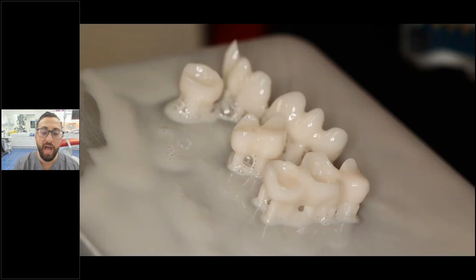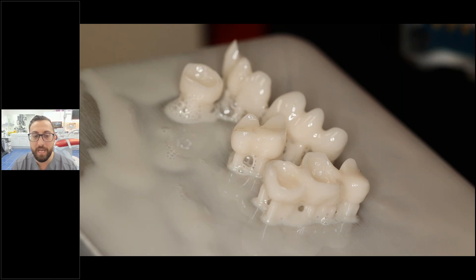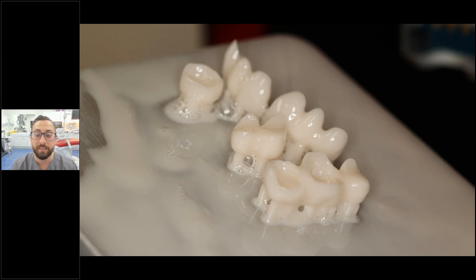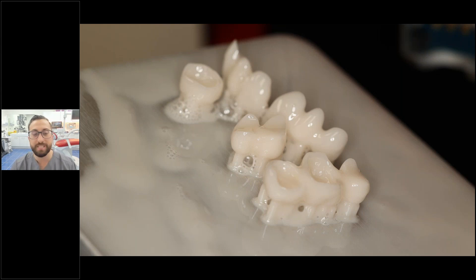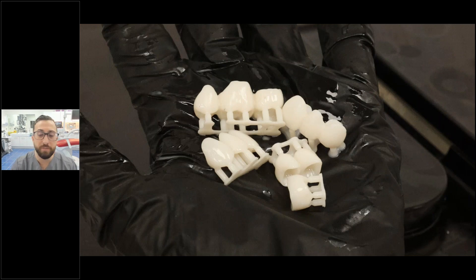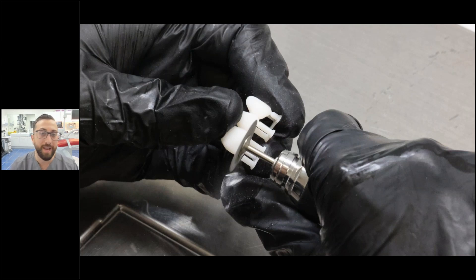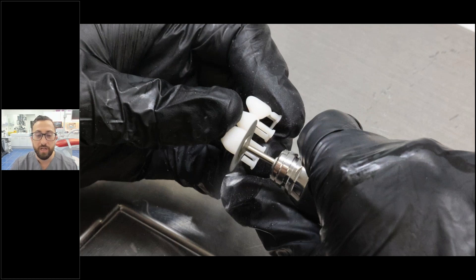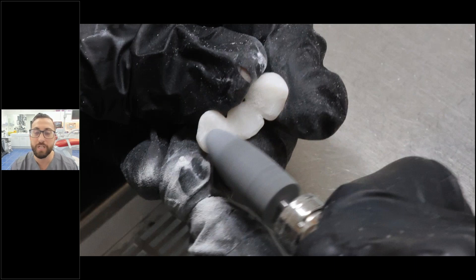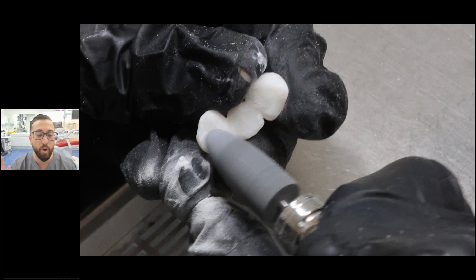A lot of the times, with all the hype, people don't realize how much work goes into printing and processing restorations. When they come off the printer they have large sprues, dripping with resin. You have to wash them multiple times, brush them, clean out excess resin, and cut every single sprue. Resins are easy to cut and polish — not like cutting zirconia — but printing is not the golden bullet it's made out to be. Both printing and milling will have their place in any digital lab or clinic, each with their own strengths and weaknesses.